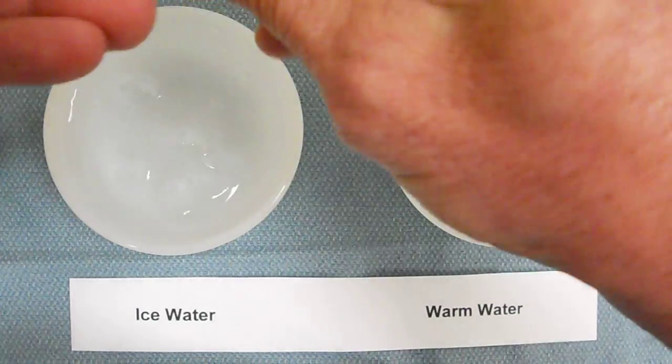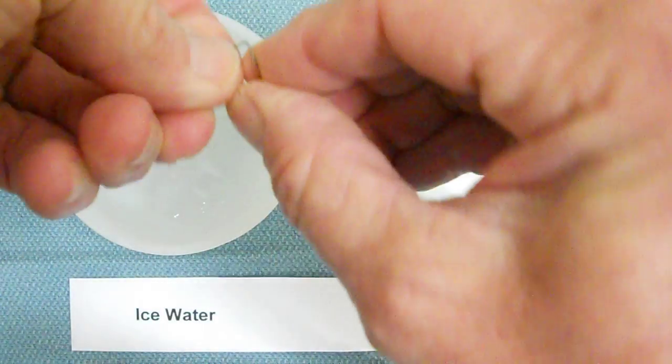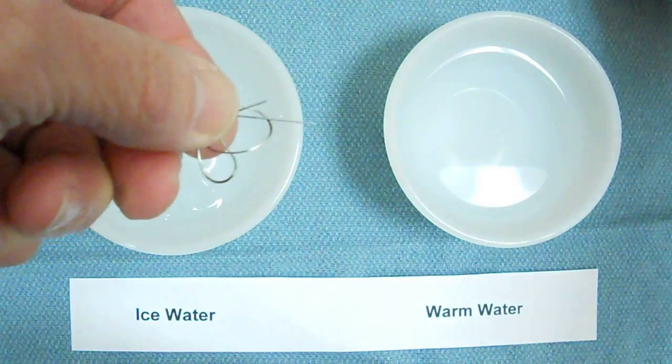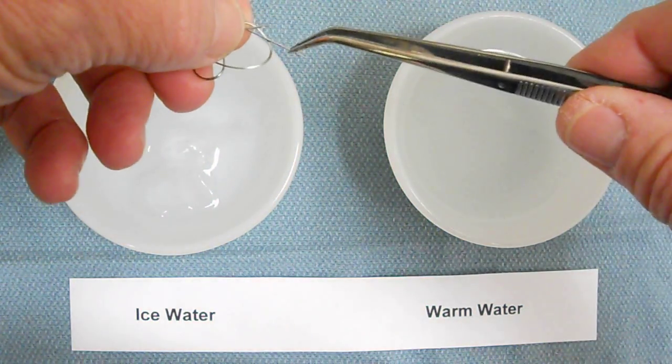Then you can deflect it strongly into severely malpositioned teeth such as this, and it stays right there. It exerts no force.